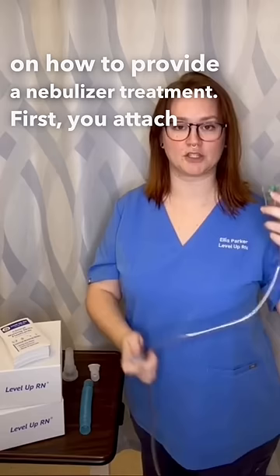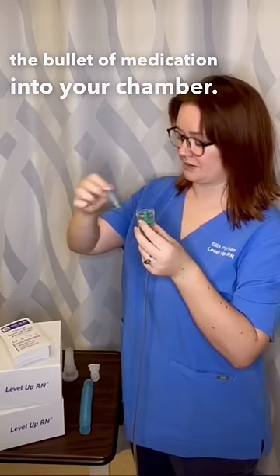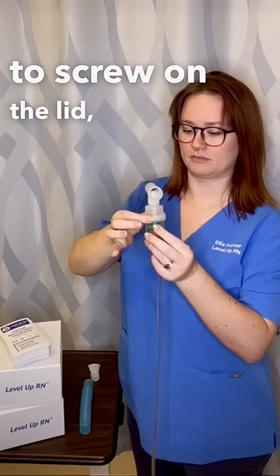First, you attach the tubing to an air or oxygen source. Next, you put the bullet of medication into your chamber. Then we're going to screw on the lid, attach the mouthpiece, and attach the corrugated tubing.